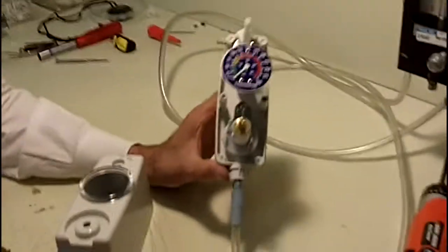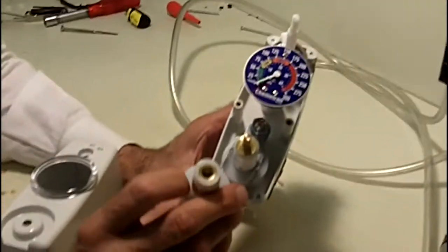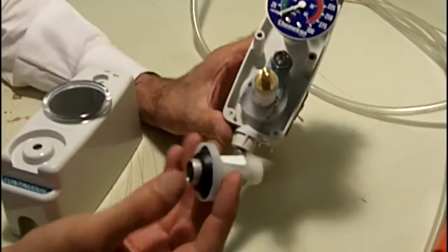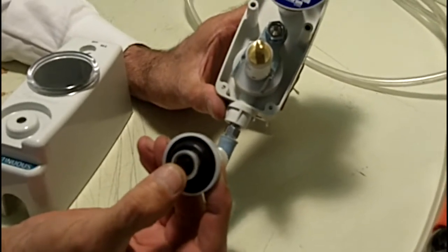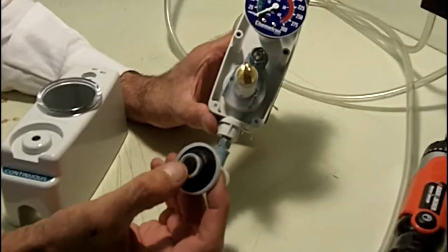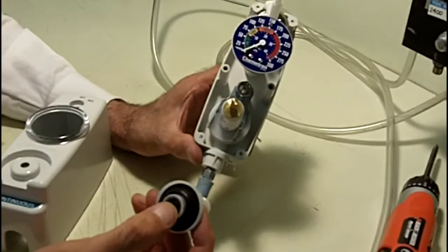Okay. Basically, this is your regulator assembly, and as you adjust the knob, you're pulling these rubber diaphragms up and down to allow more vacuum in and out. There's also a sensing disc on the tip here.